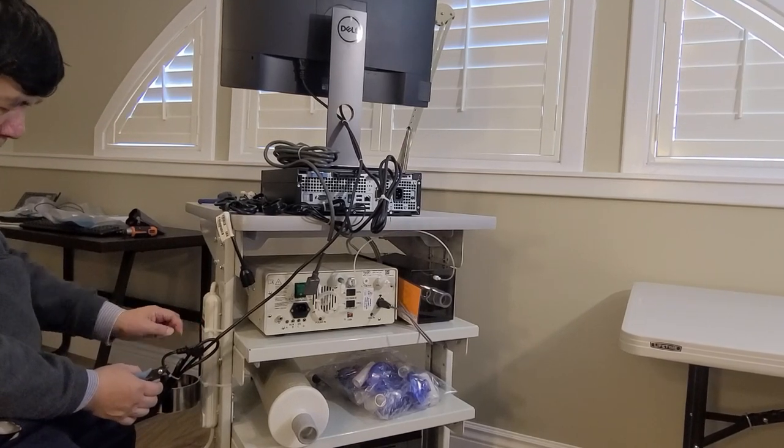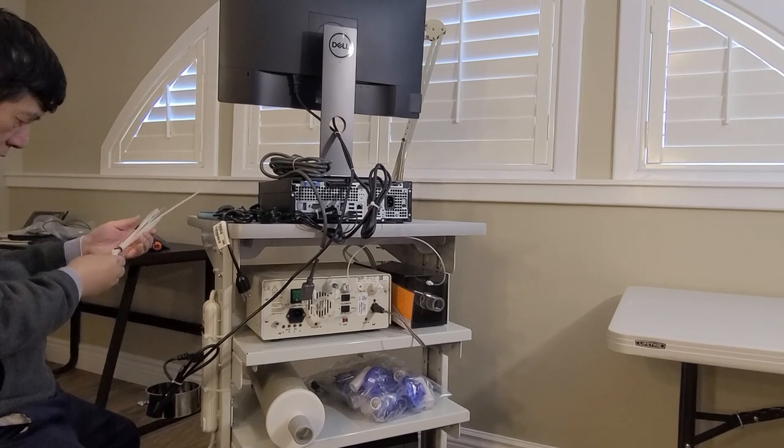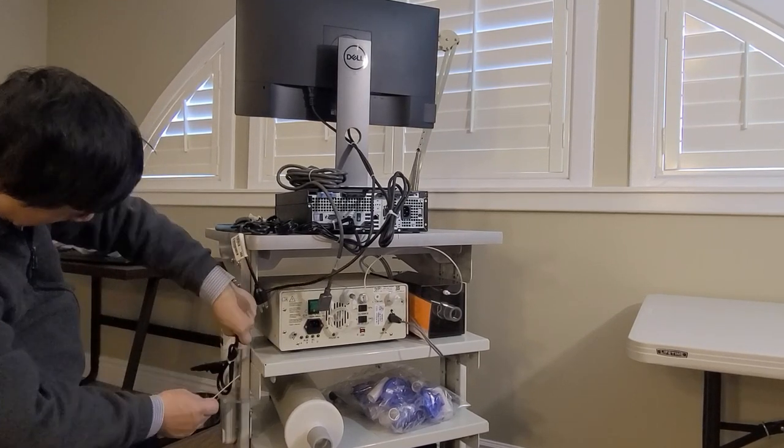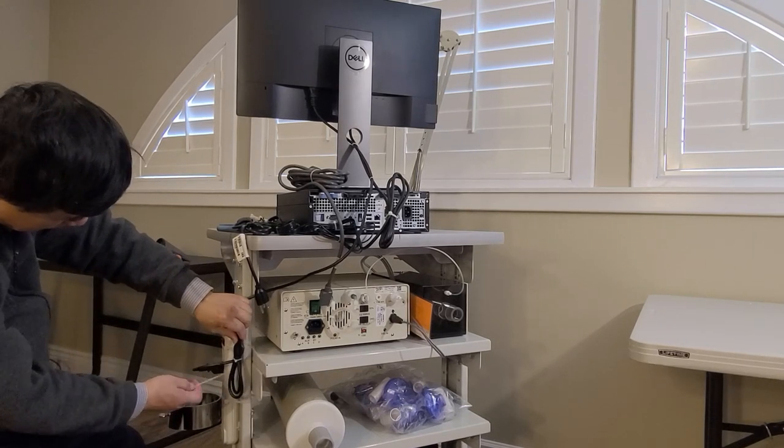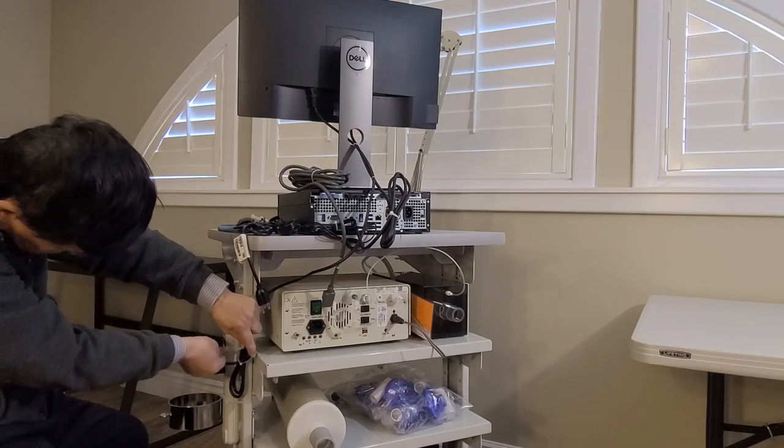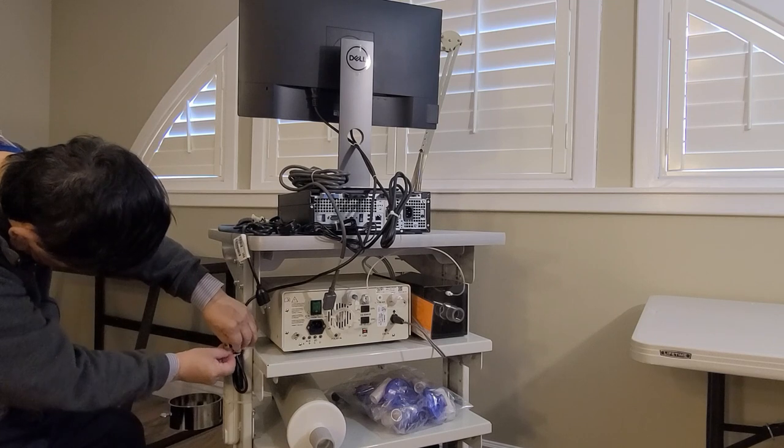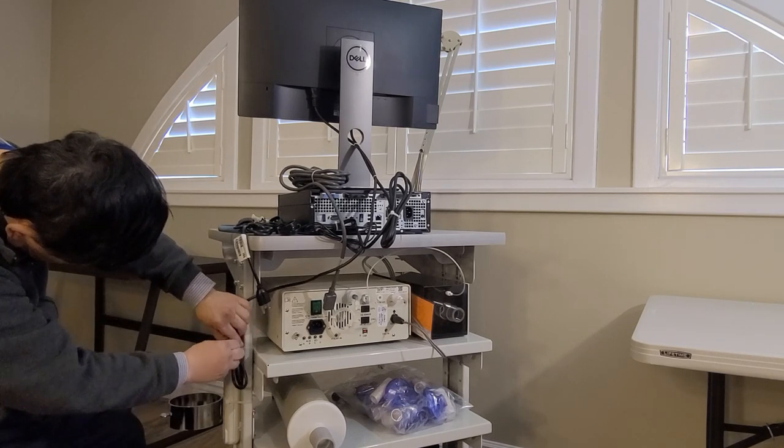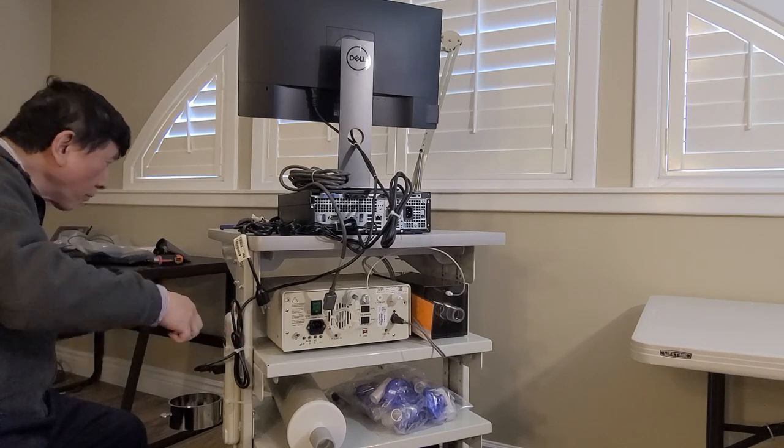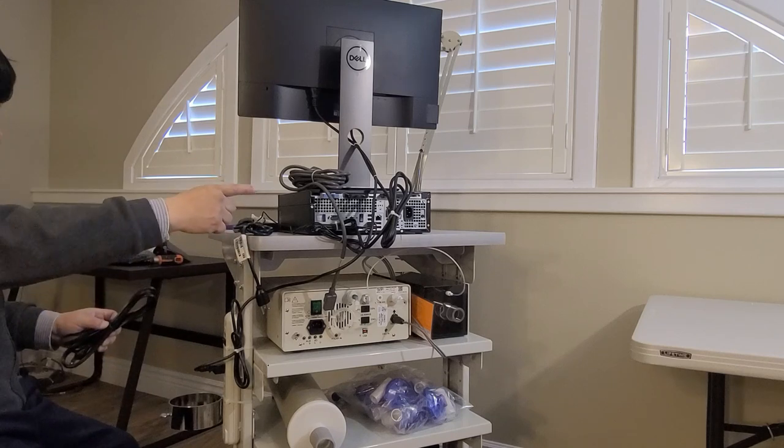The first socket is reserved for the weather station. This is important, we tie this monitor power cord to the first long strip. That's it for the power cord and the DP cable of the monitor.